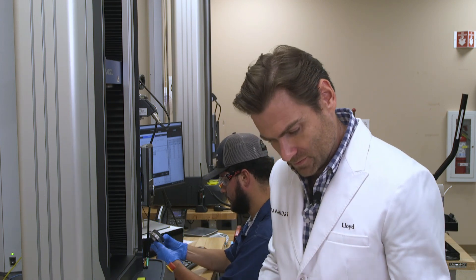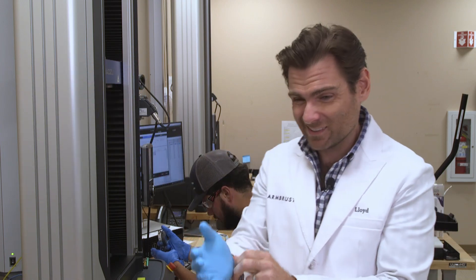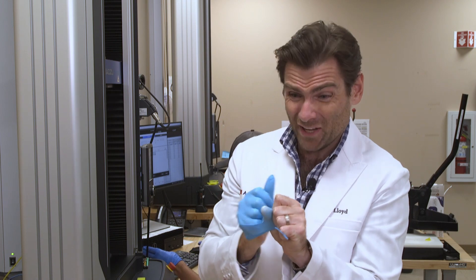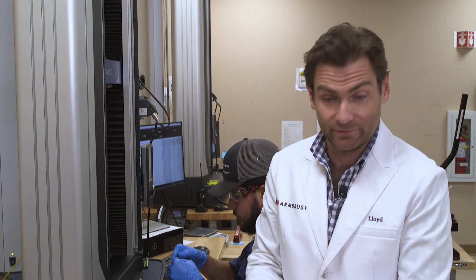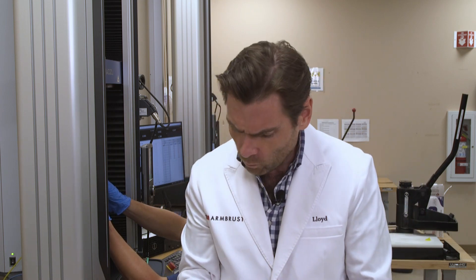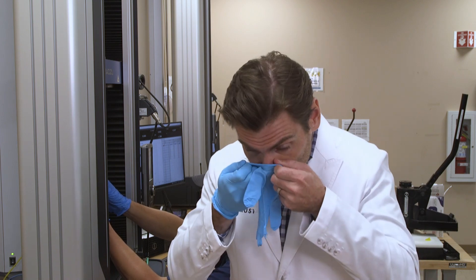It's a little tight for — is this a medium? This is like the tightest fitting medium I've ever had. That's really good though — it didn't explode. Well, it had a micro explosion. The hand feel on this is really nice when you put it on — it's just silky smooth. For the smell, we're going to call this a slightly used beach ball. These are old gloves.